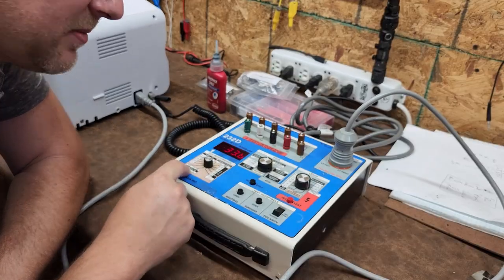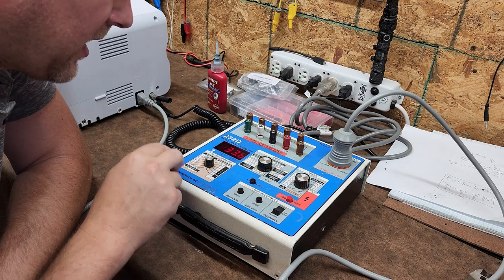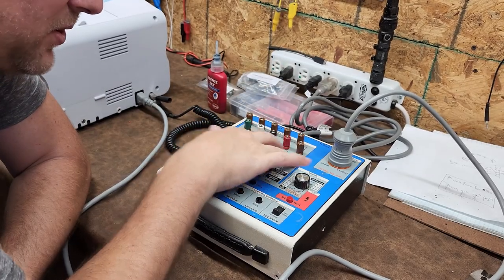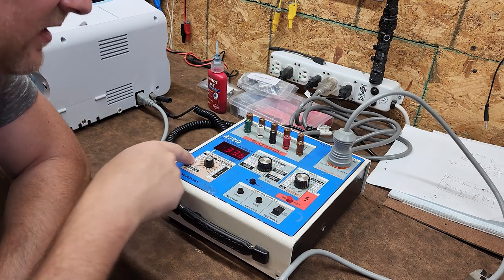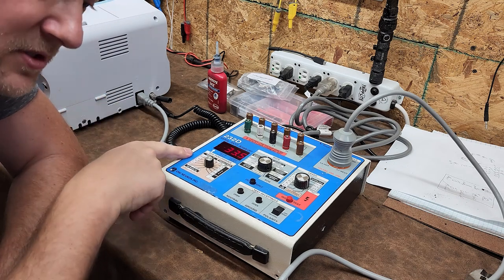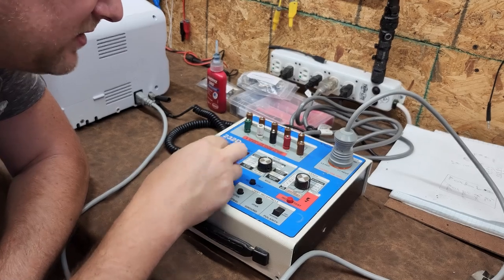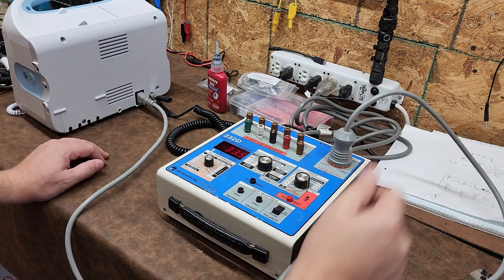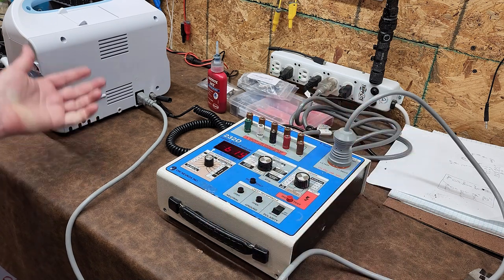I didn't go over some of the other features, which are pretty cool. We've got square wave, different degrees of sine wave, and triangle — you can throw those on your ECG. I've also seen people use electrical safety analyzers to inject frequencies into a device under test to check for filter circuits. And we've got 30 to 240 BPM to test alarm levels. Overall, cool device, cost me $200, it is running, and everything seems completely functional.